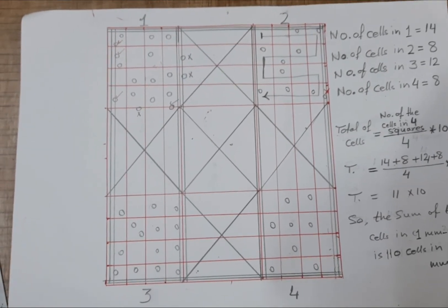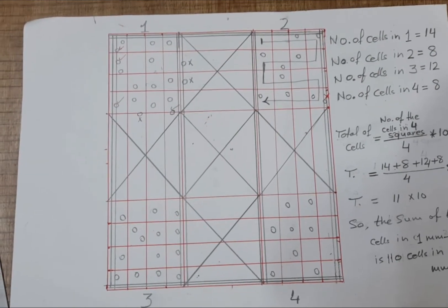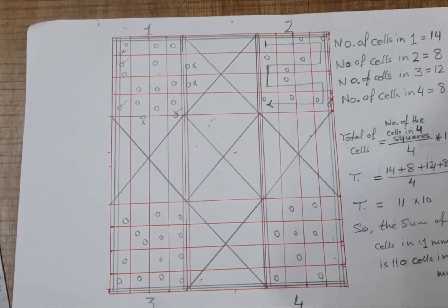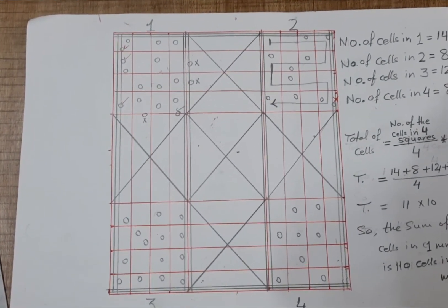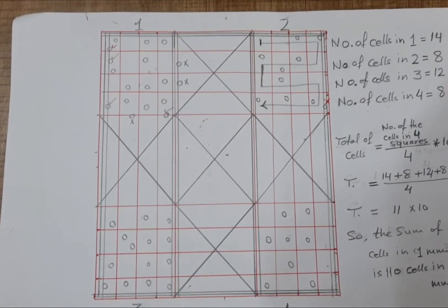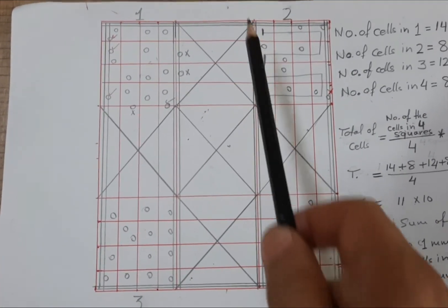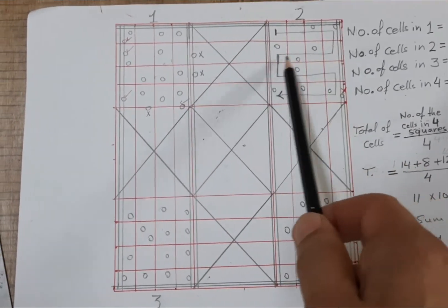When we count, we start from this point and end at this point. This is very important to correctly count the cells.